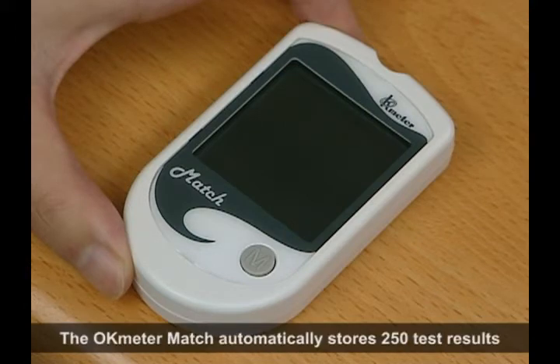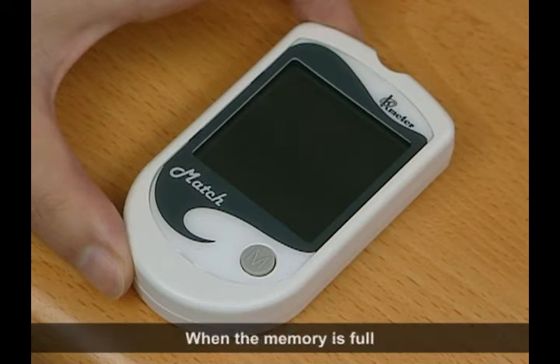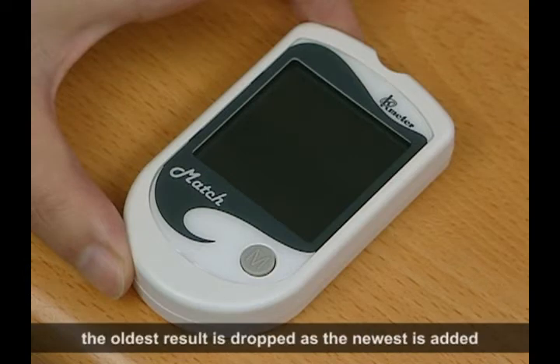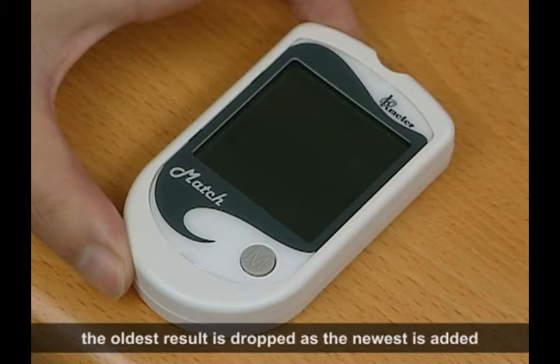The OK meter automatically stores 250 test results. When the memory is full, the oldest result is dropped as the newest is added.